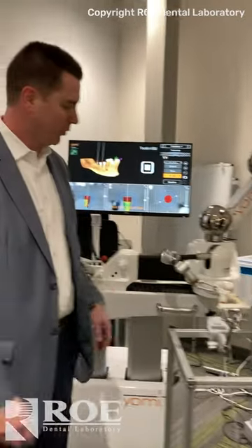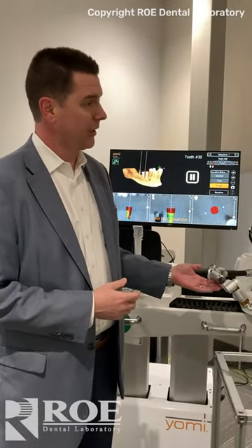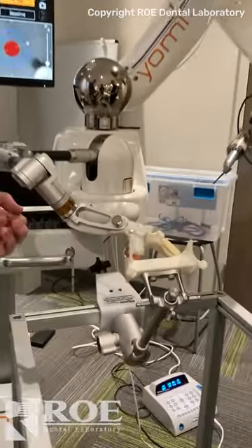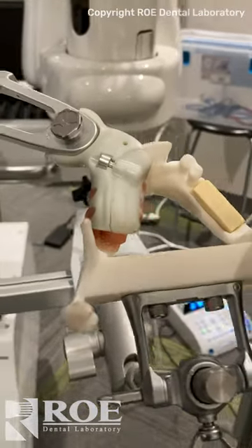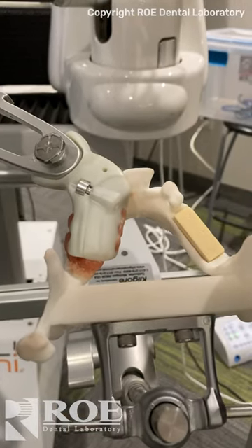What do these things do? Yes, good question. So we have two state-of-the-art robotic arms. The first one is called our patient tracking arm. Essentially, it's attached to the patient via this link or splint, and when the patient is in surgery, if the patient is moving, the robot knows that the patient is moving and is able to adjust and keep up with that movement. That's how we're able to achieve submillimetric accuracy.